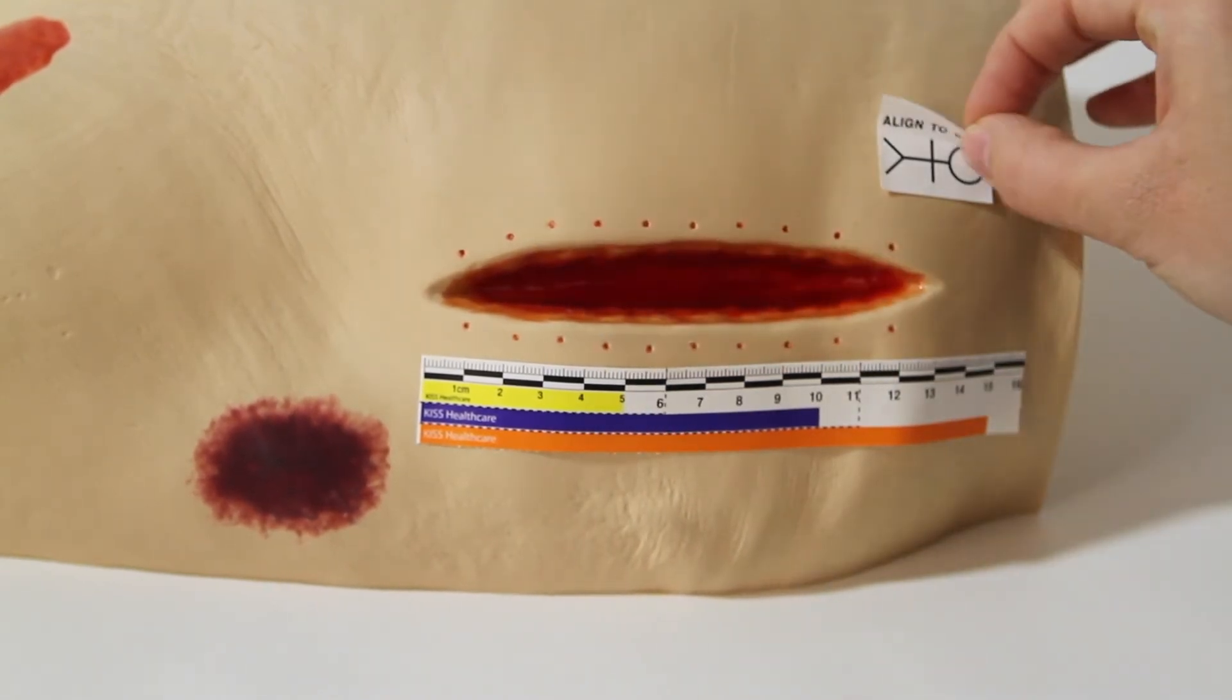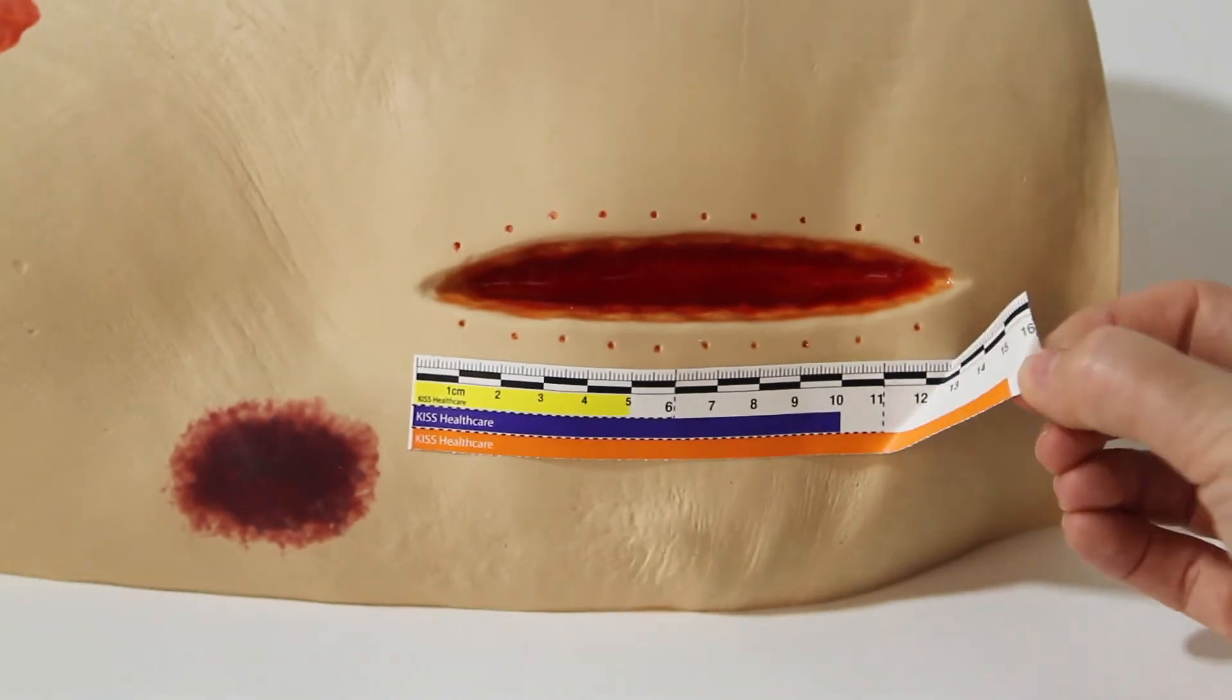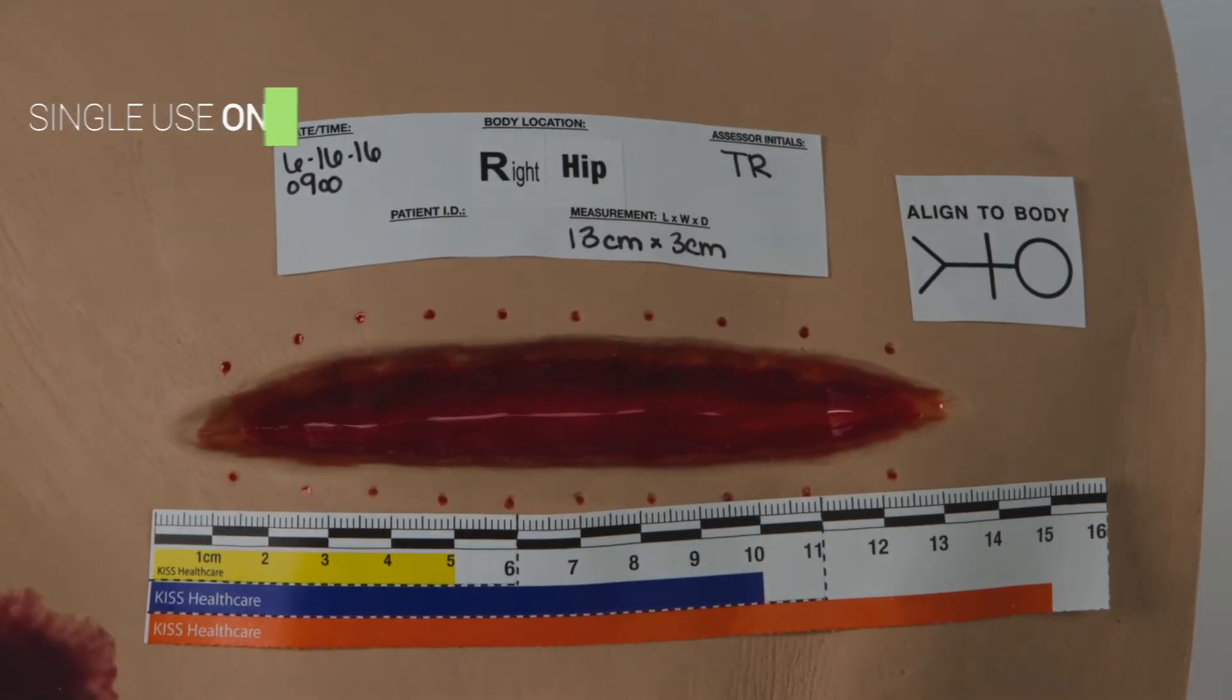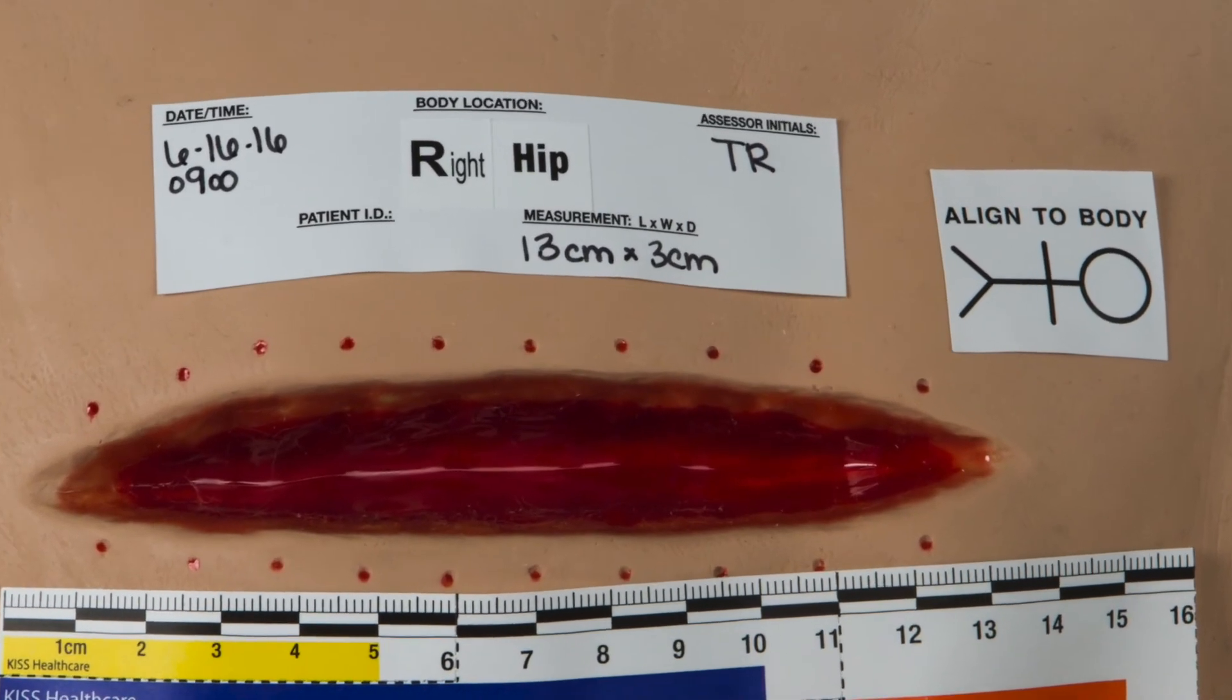They are for single use only and are not meant to stay on the patient. Remember, keep it simple.